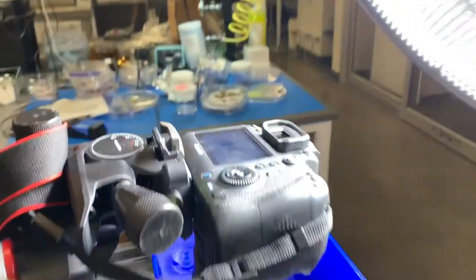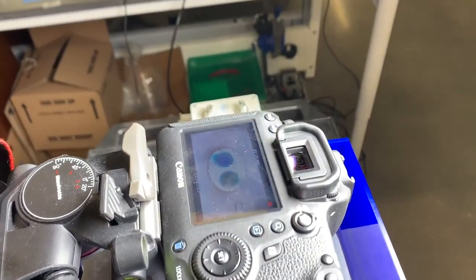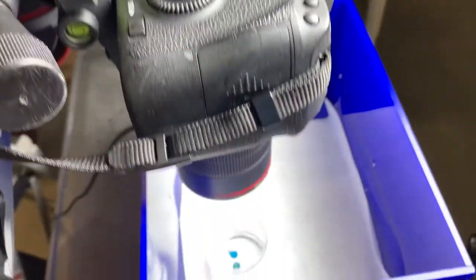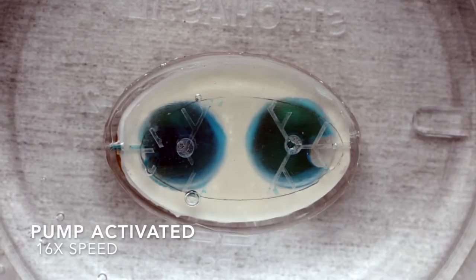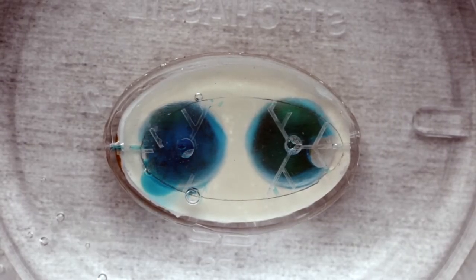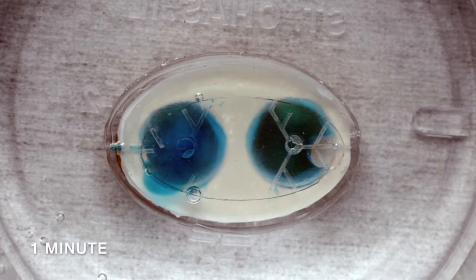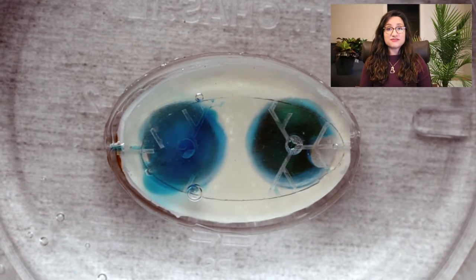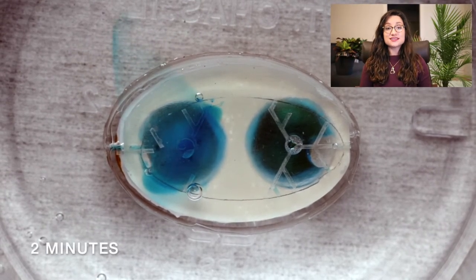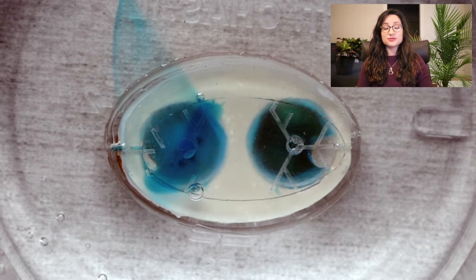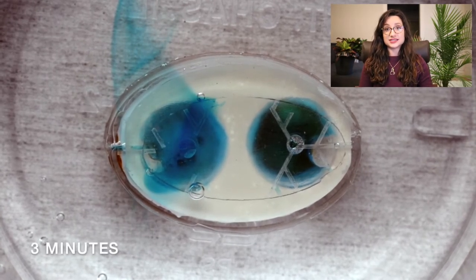We have to prove that the device releases the medicine, so I also get to produce other videos like this one. This is probably my favorite part of work. You can see the blue liquid leaving the device, and the blue liquid is like the medicine that the device ejects.